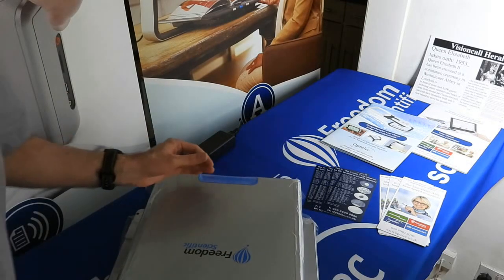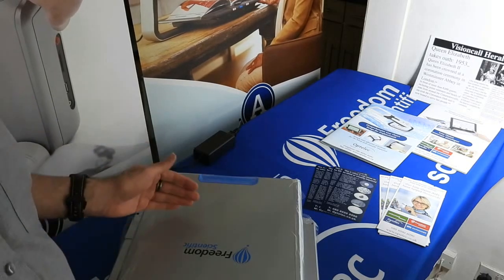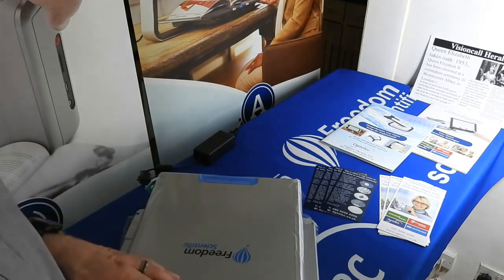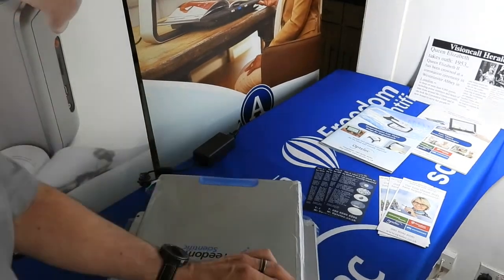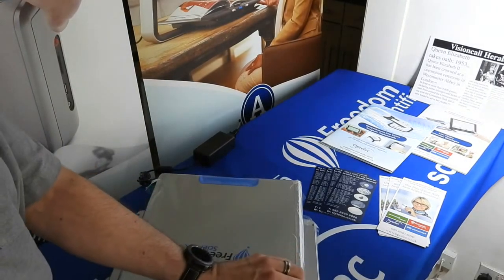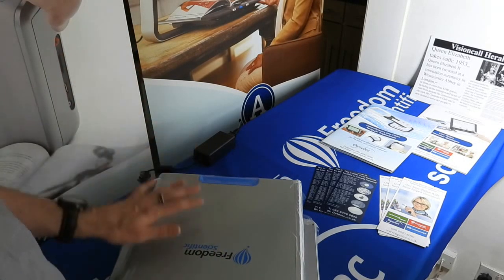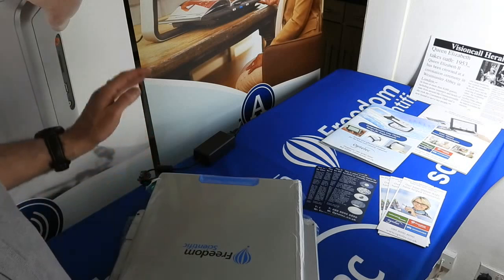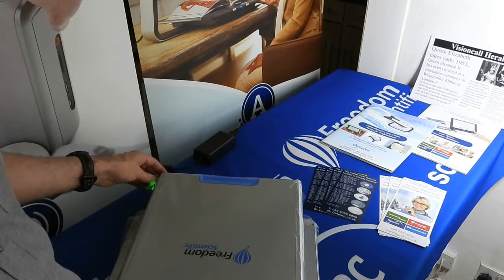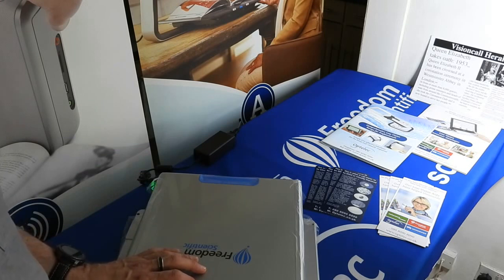So it's the best of both worlds. It does come with a carry case as well — a laptop-style carry case. The whole idea is that should you wish to transport it anywhere — possibly a second home, holiday homes, caravans, or even just taking it to a local library — you can certainly do that, because this unit also has a built-in battery option. Should you wish to take it away, you don't necessarily need the power supply if you're only going to be away for an hour or two.